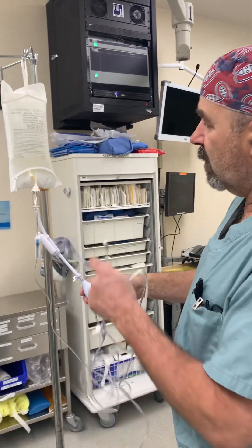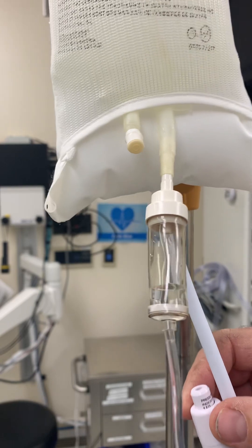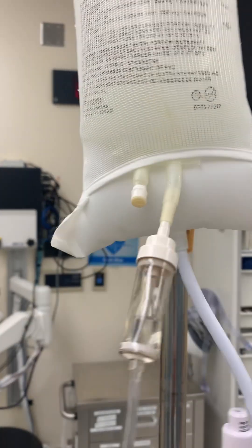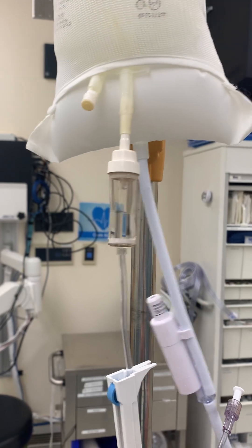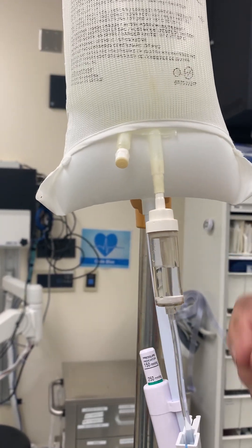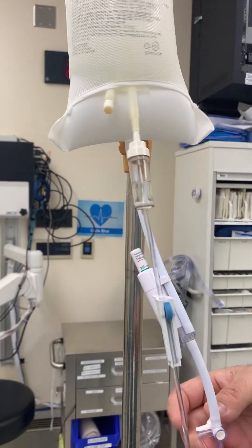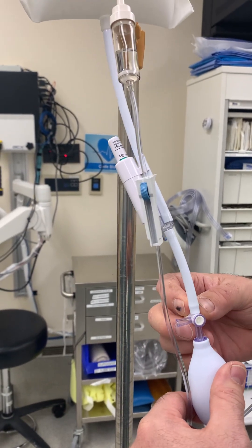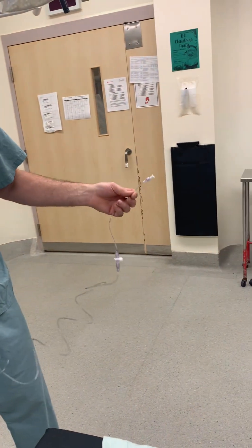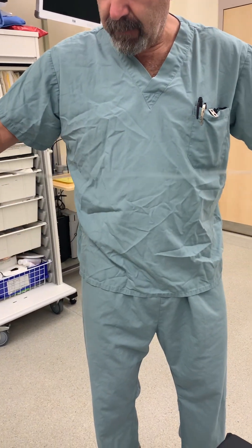Now we can pressurize this. Look at the chamber — when it's pressurized, we're going to go up to the green tab, which is 150 millimeters of mercury pressure. Pressurize until we see a green line on the indicator. Notice while I'm pressurizing, the fluid is being pushed into the chamber. Now we're at green — make sure you close this valve on the little pump, otherwise it sometimes leaks. For the last step of priming, once it's pressurized, give it a little shot, then quickly check your line to make sure there's no air in there.